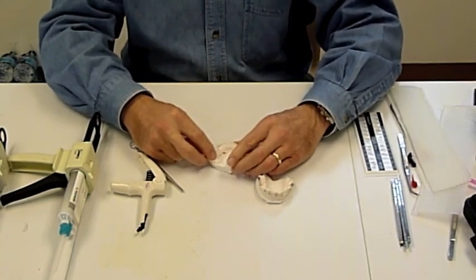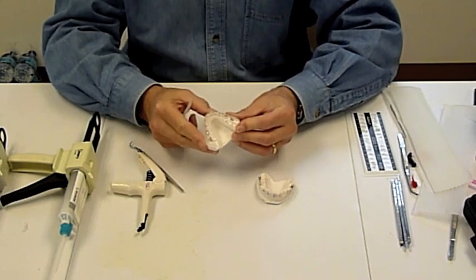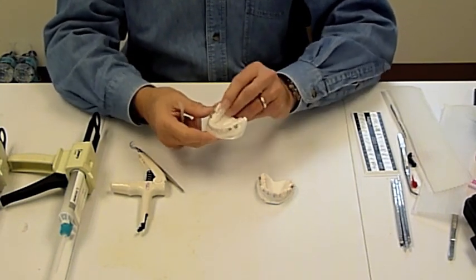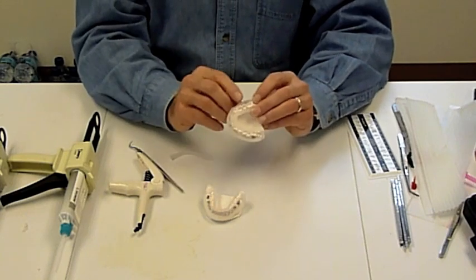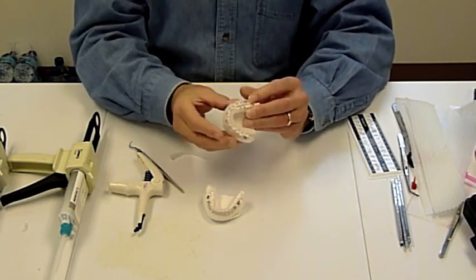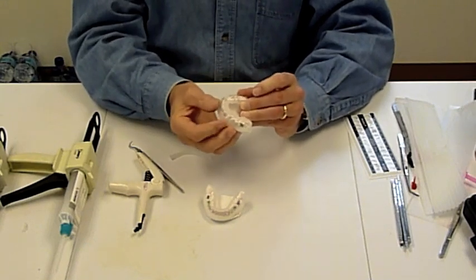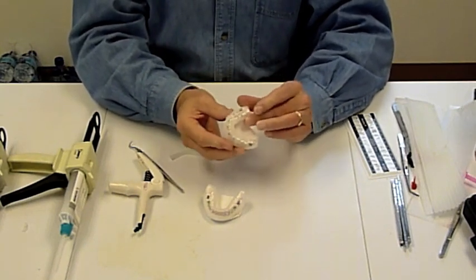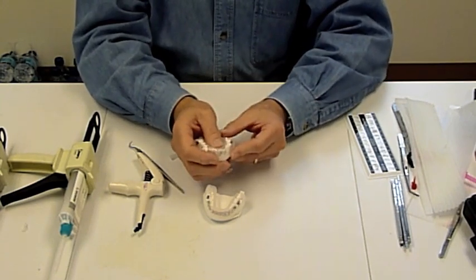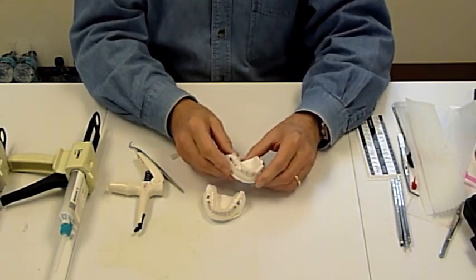This is where it's going to hold our emiluma and our memosil in place when we wrap it with some plastic. Placing the wax close to the brackets and not on them means that we use the minimum amount of the material, a little waste, and it makes finishing the brackets that much faster.